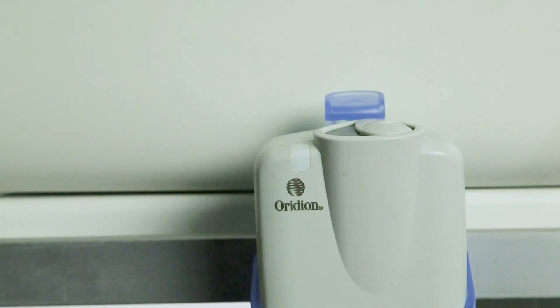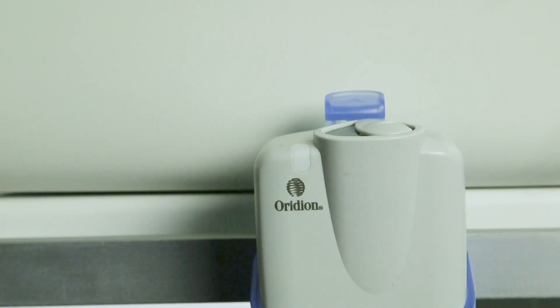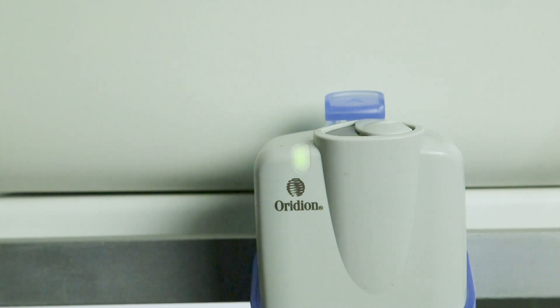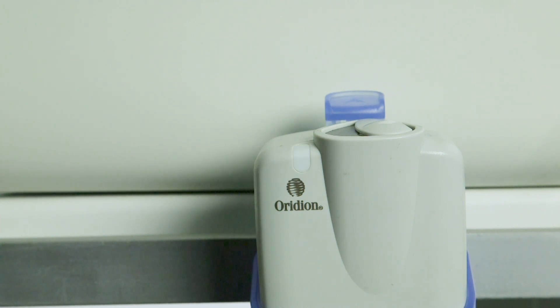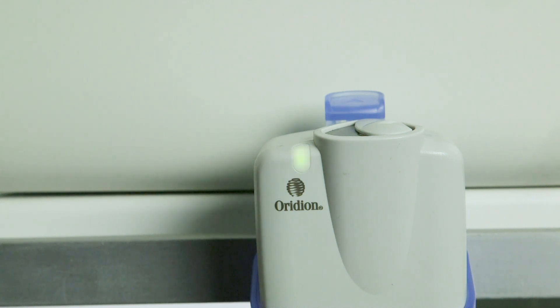During startup, the LED on the module blinks slowly. The initialization can take up to three minutes. When ready, the LED will remain on continuously.